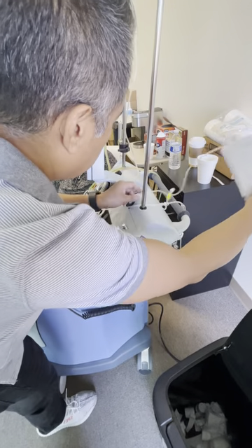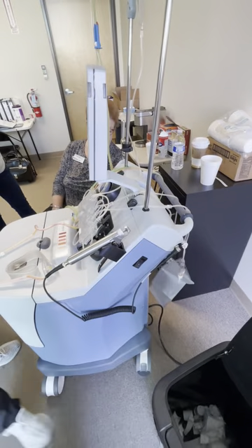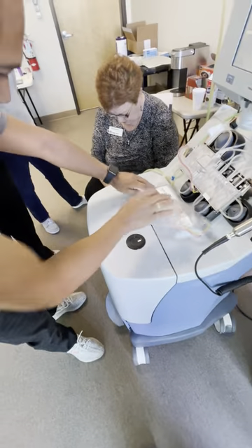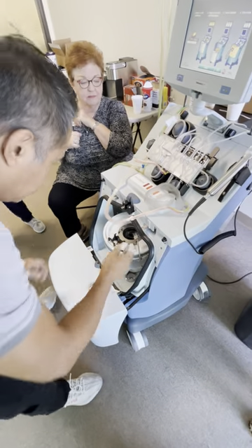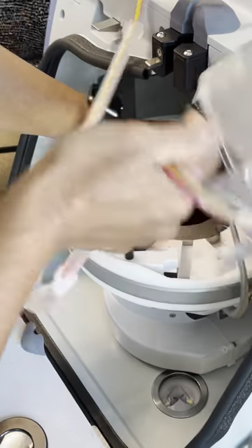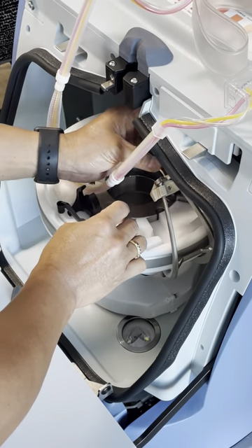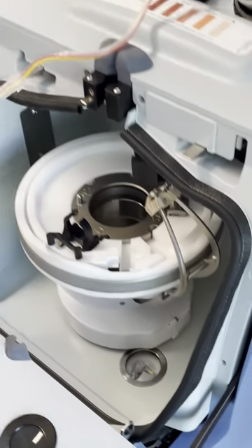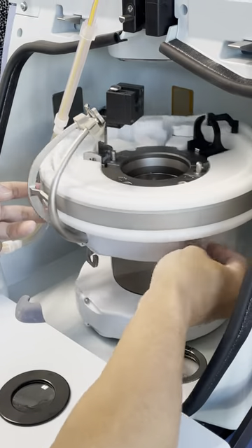Some people I call them hurricane nurses, tornado nurses. You come to the room to do the treatment and, my God, you can't find anything. Now what do we need to do? Load this. Let's set that centrifuge door open and let's raise the filler latch — that's the toilet seat. Then find the loading port, the hole in the centrifuge. I'm going to come from the bottom to the top. So this is like putting the baby back in the mama.